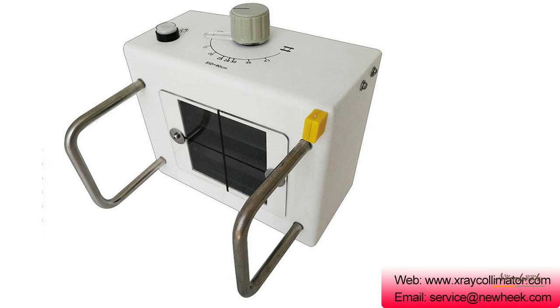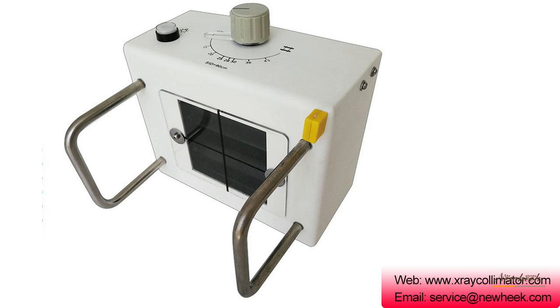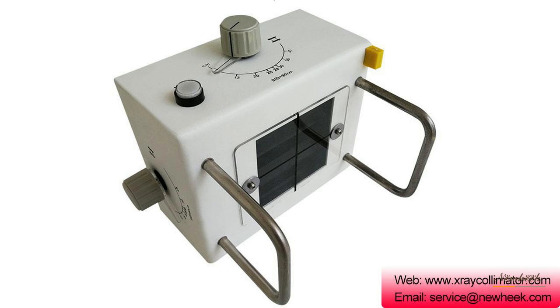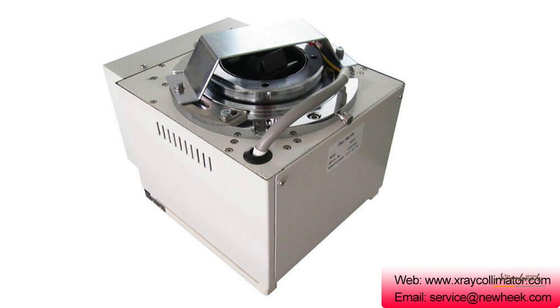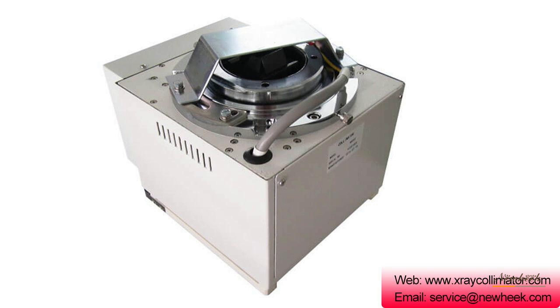The X-ray collimator panel can be controlled with a manual knob. The scale value on the panel can be set by the user with the knob, allowing the user to read the size of the field of view according to the data.